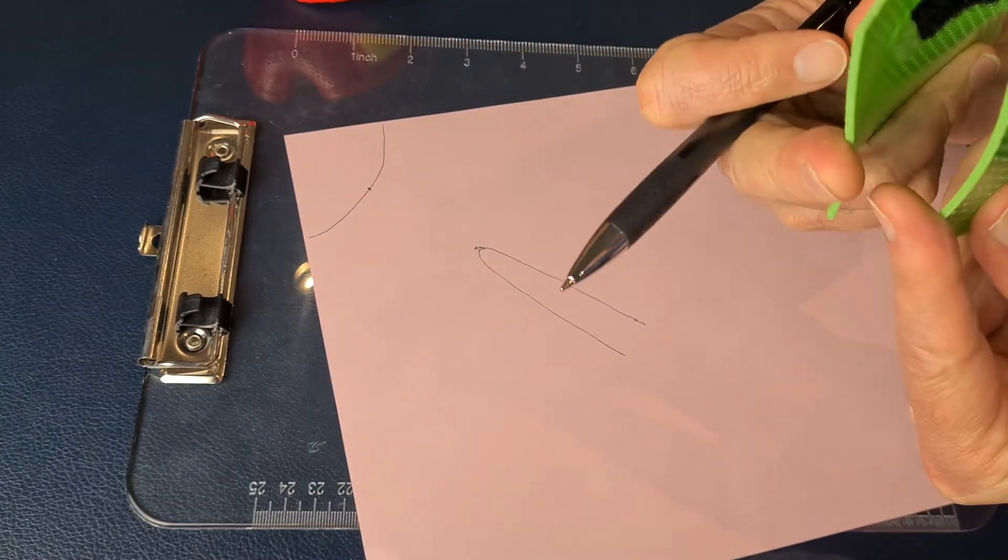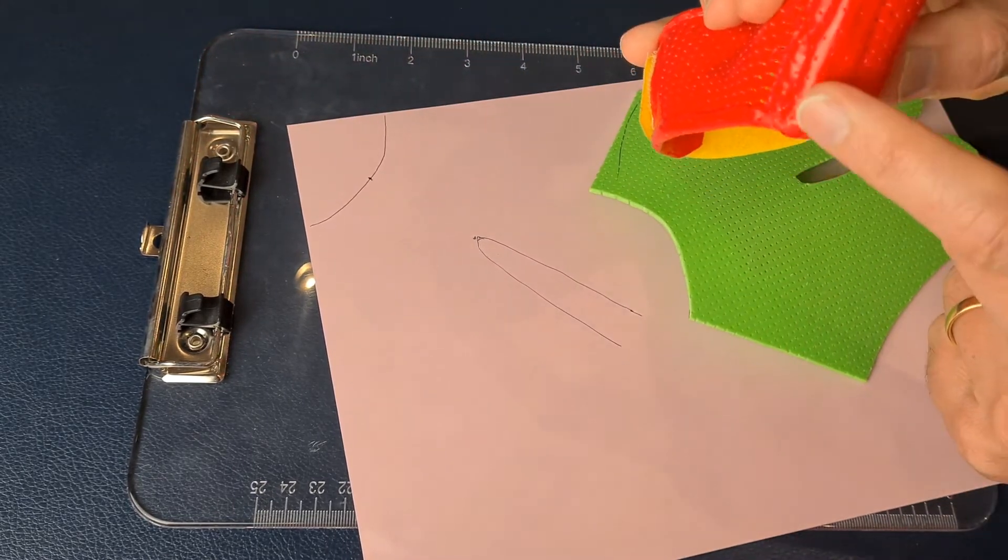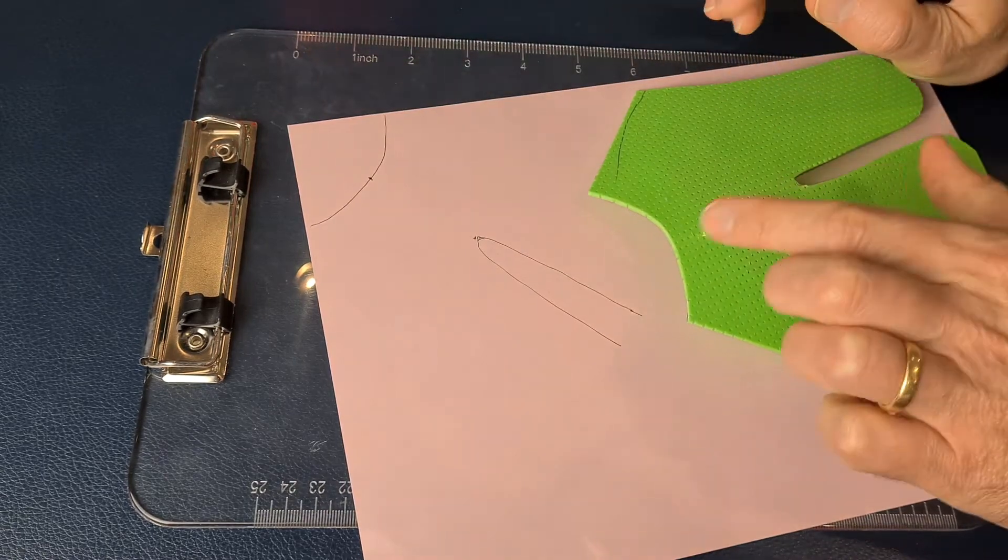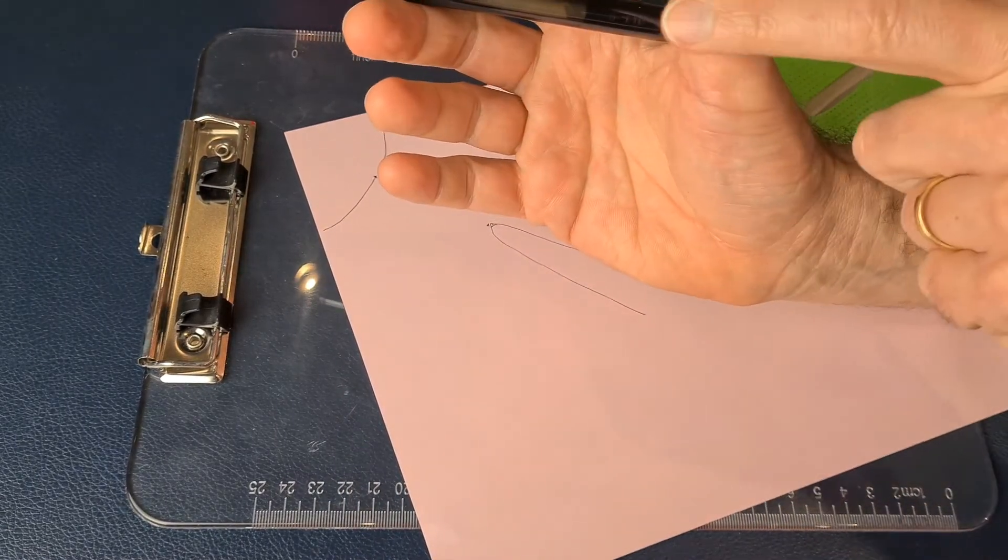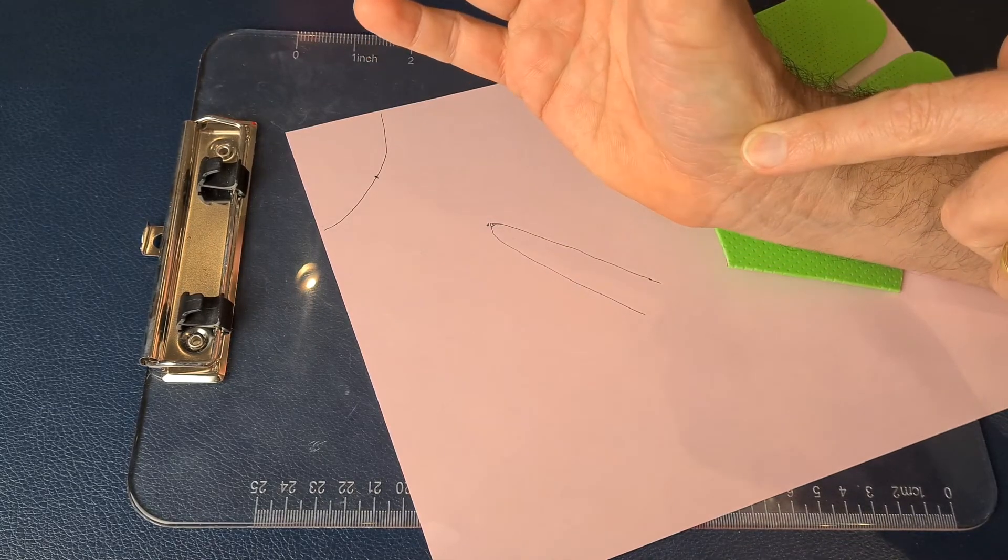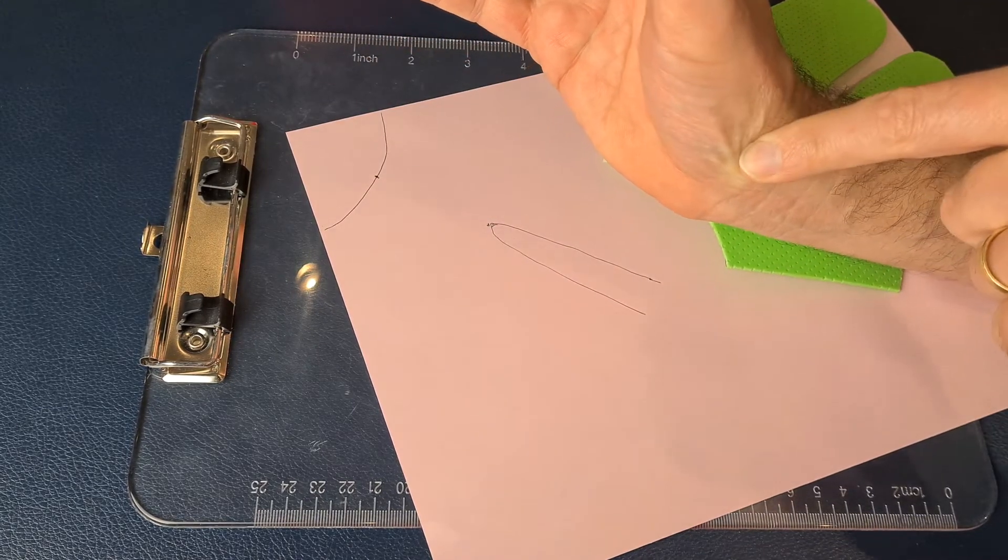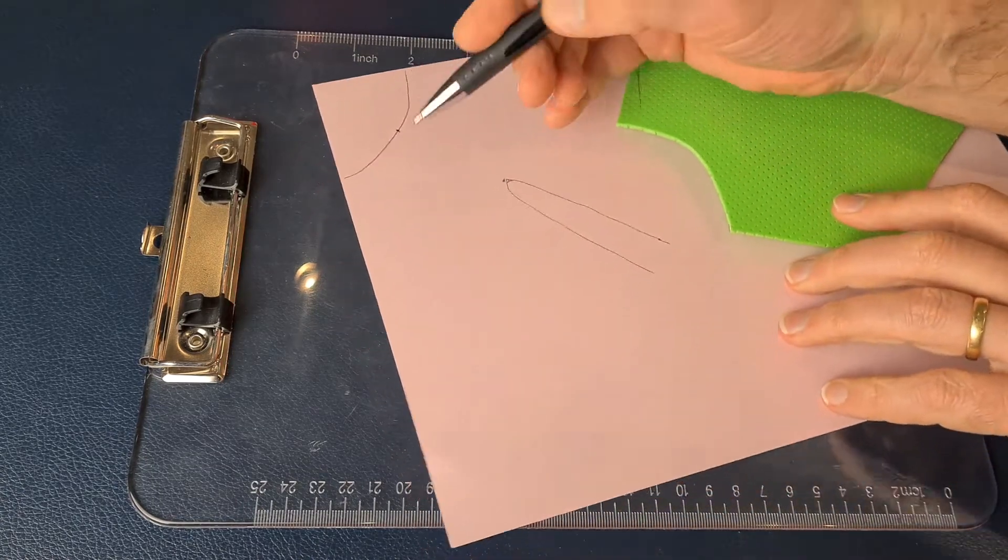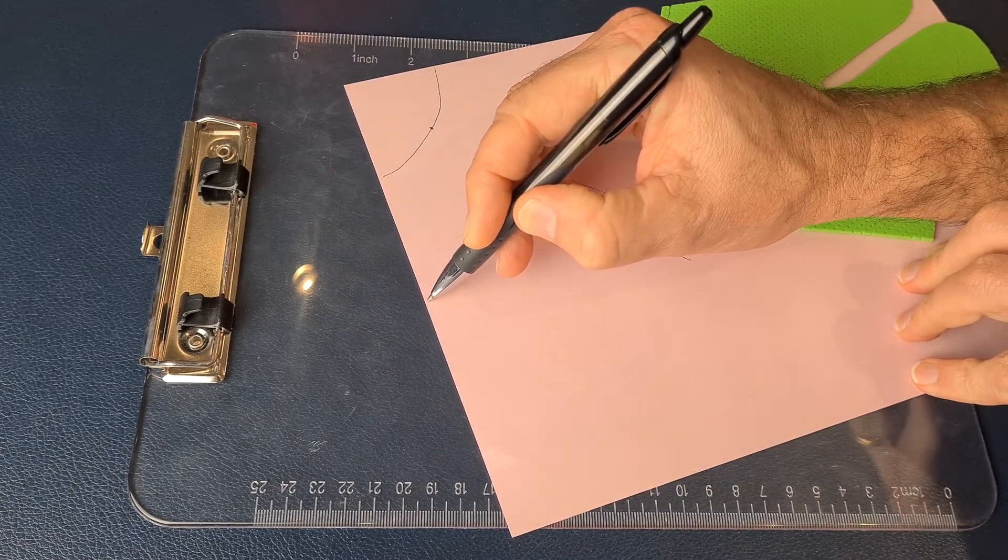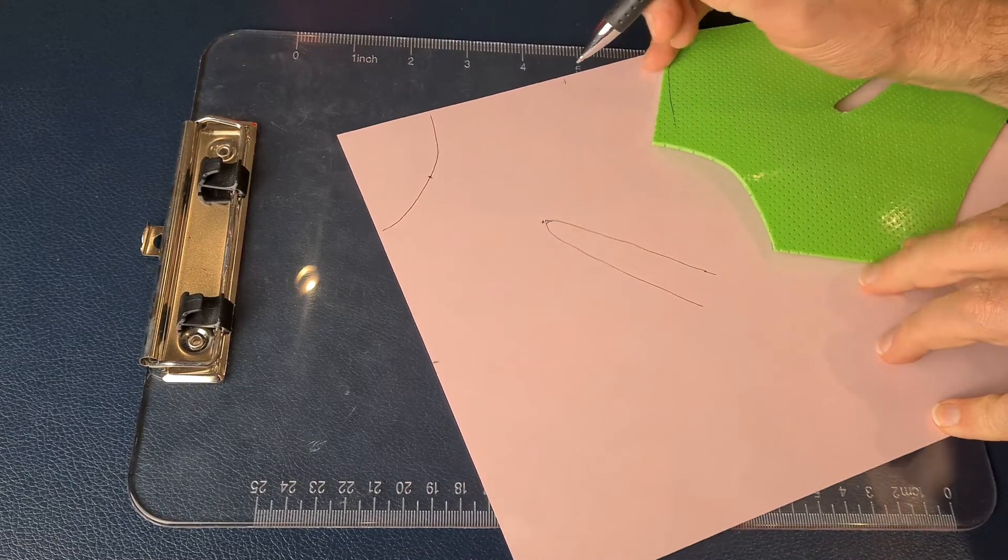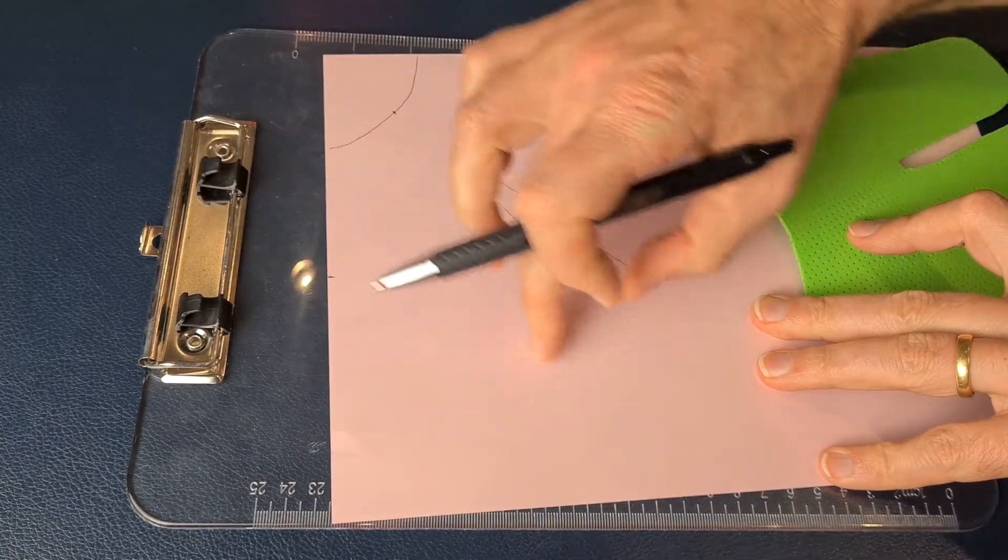And so that is the distance from the thumb IP joint down the side of the thumb on the radial aspect to the CMC joint at the base of the thumb. That distance gets converted onto the page here and here, and then it's just a matter of making tabs.